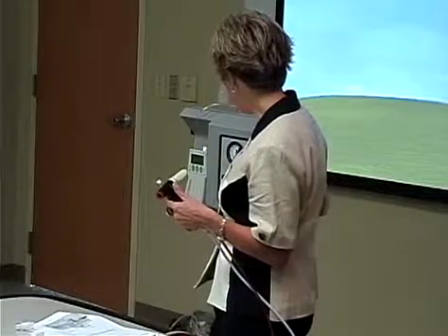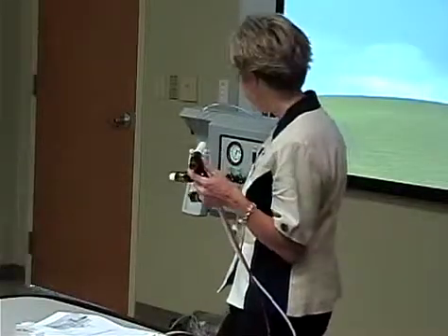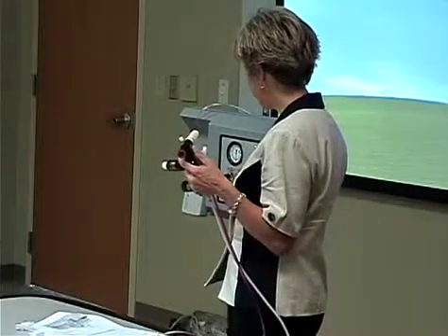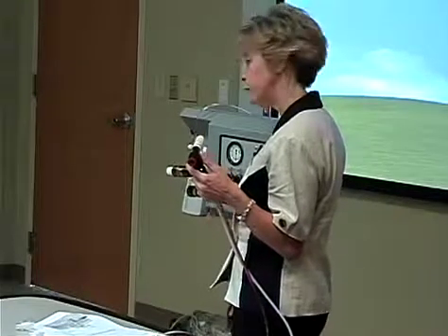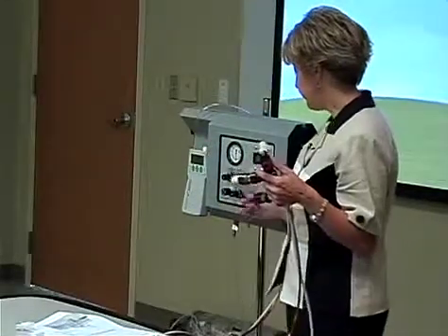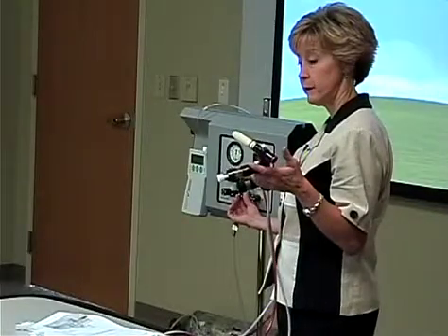So let's say this baby that we're just ventilating is now requiring pressures of 30. You can now change them over to high frequency, but you need to take the baby off and bag them to do that. We're now going to change the baby to high frequency. You can choose to just turn that down, turn your knob on to high frequency. This is going to give you flow to your ventilator, the amplitude knob. So you're going to turn that on.